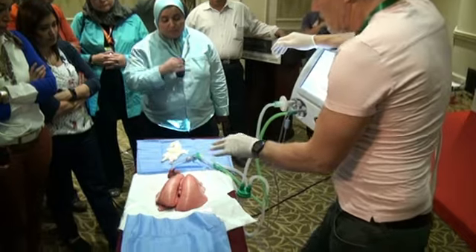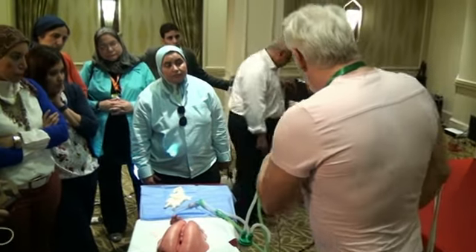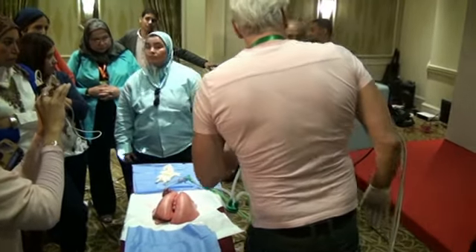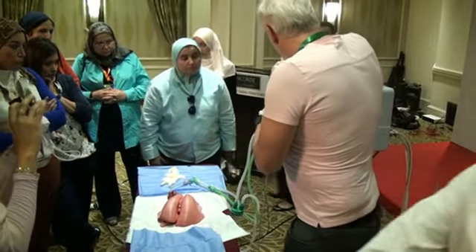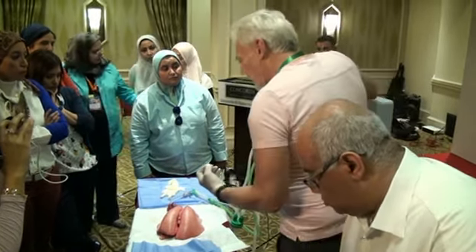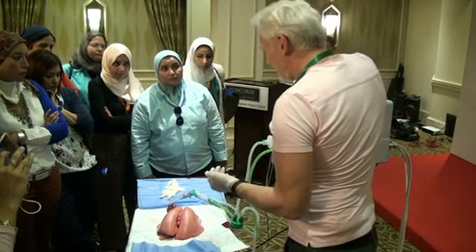I'm looking at these lungs, and I found something where I think I'm ventilating reasonably. I've got a PIP, I've got a PEEP, my graphics have changed, and I've got a pressure volume curve that looks sort of reasonable. It looks like a reasonably compliant lung. Obviously we can't normally see this, which is the beauty of looking at this lung.